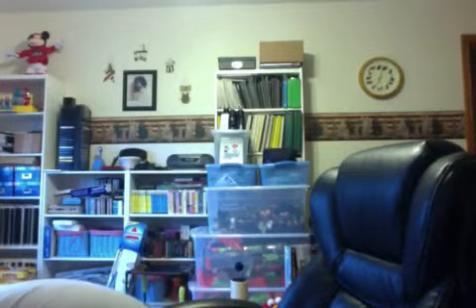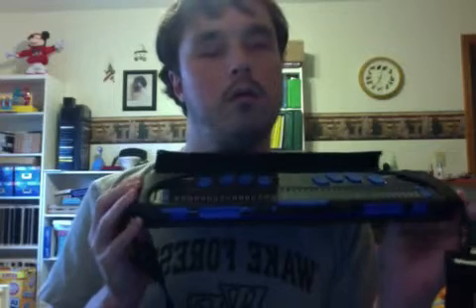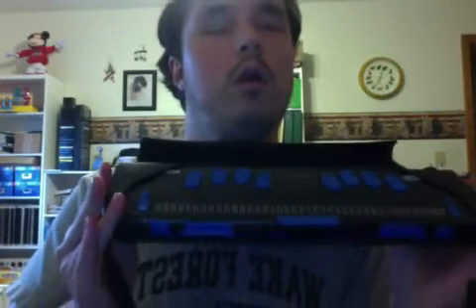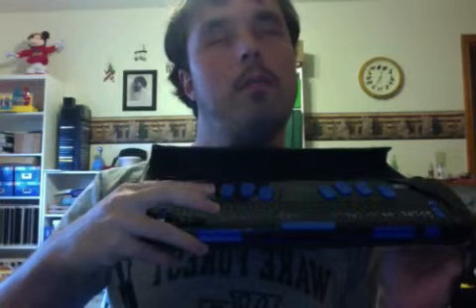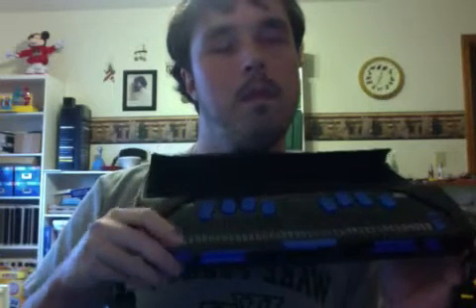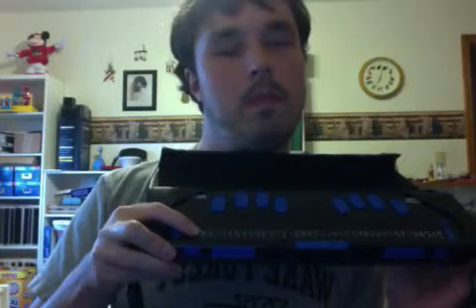I'll show you an actual Braille display, and you guys can look at it for yourself. What an actual Braille display looks like, without the note-taking capabilities that the Braille Note had, is this. I got the product executive case, but this is a Focus 40 Blue. I will turn it this way so you guys can see. You know how I said that pins pop up? Well, let's see what happens if I do this. Okay, pins just popped up, and now they'll pop back down. Oops, sorry. Let's pop the pins back up. Okay, now we'll pop them back down.